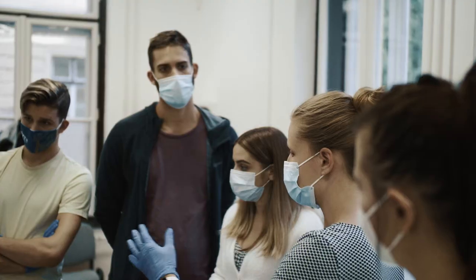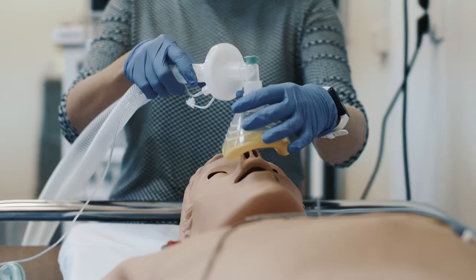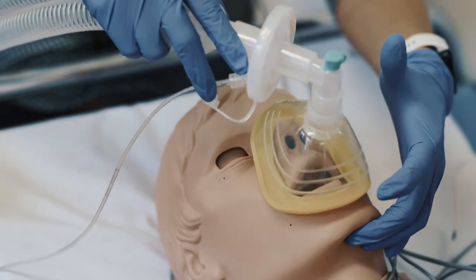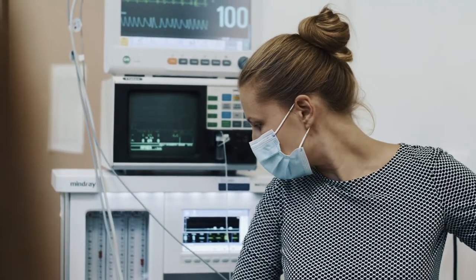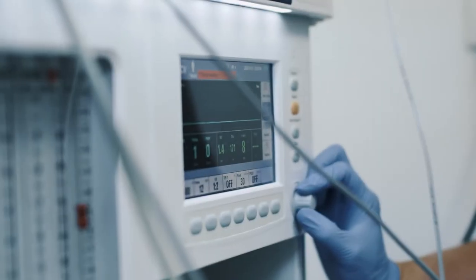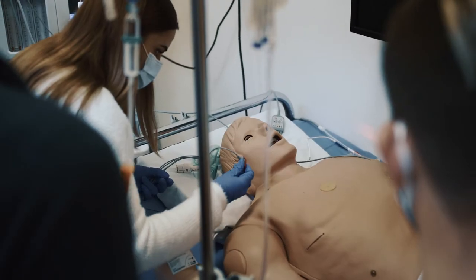Students can also safely practice the implementation of planned narcosis and the treatment of rare emergency cases. Due to its different heart and breathing sound settings, it can also help to master physical examinations.